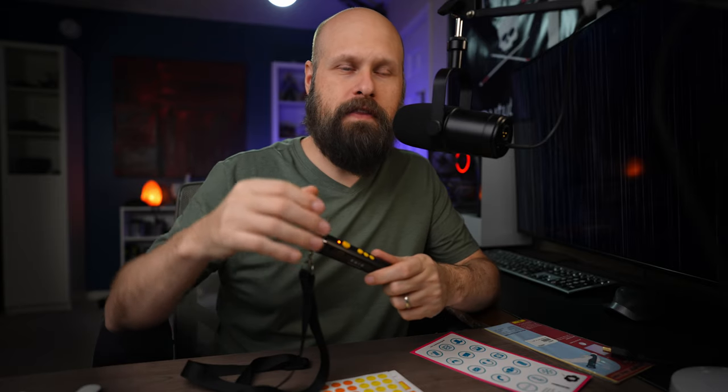If you want to put MP3 files or talking books onto your Pen Friend, there is free software you can download to do that. You connect the Pen Friend with the USB cable that comes in the box to a computer and use that software to transfer the files. One thing to note: when they say talking books, they just mean audio books — it's not the NLS National Library Service talking books. This does not work with BARD, the Talking Books Program, or Bookshare. You would just load an MP3 audio book file onto the Pen Friend to listen to it that way.